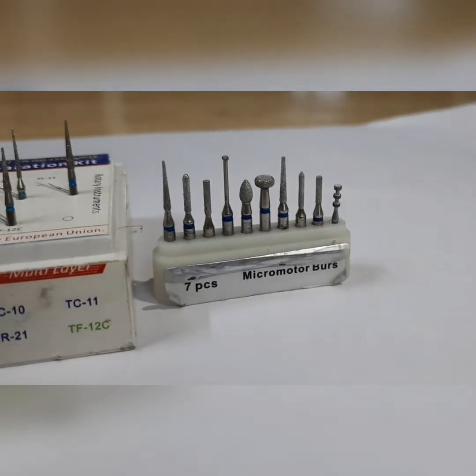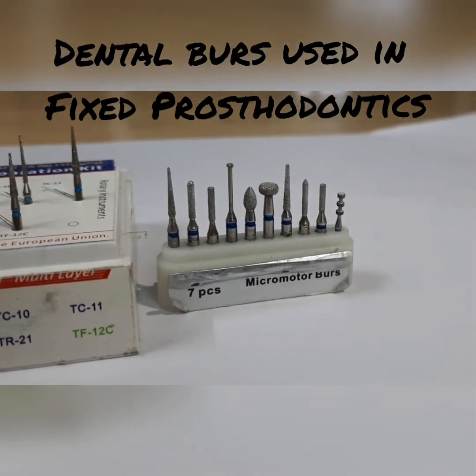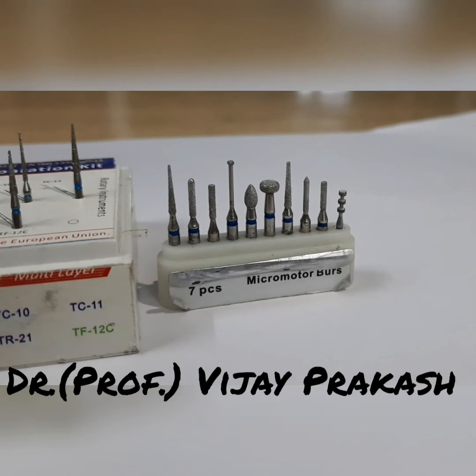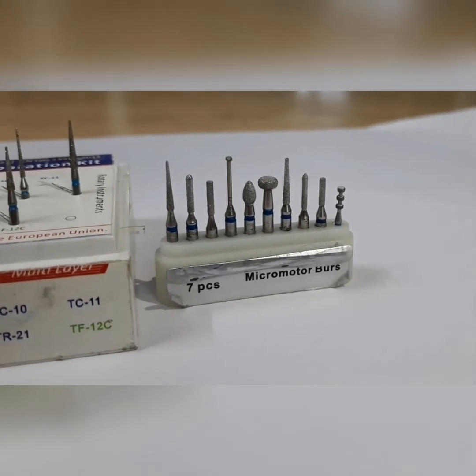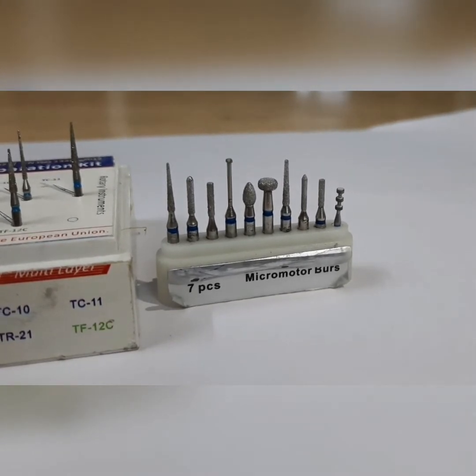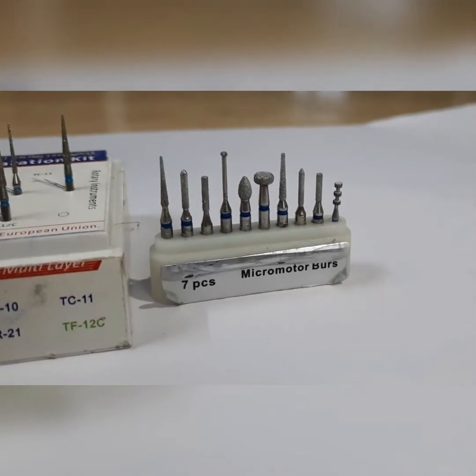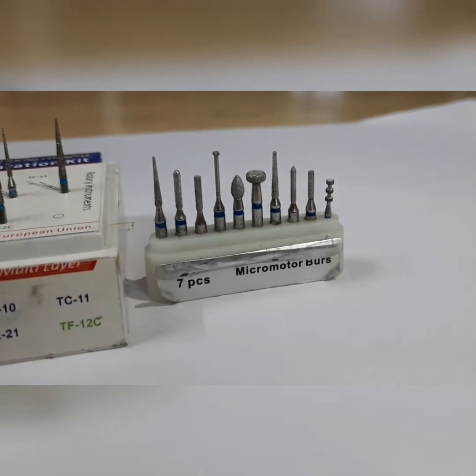Good morning. I am Dr. Vijay Prakash and today we will be telling you about different burrs which are used for crown preparation or in our practice of fixed prosthodontics.